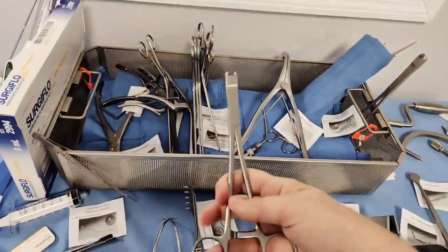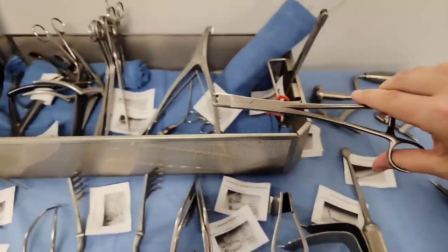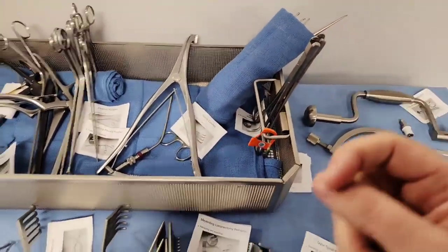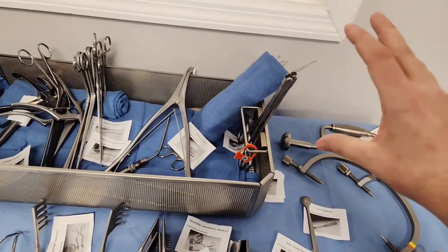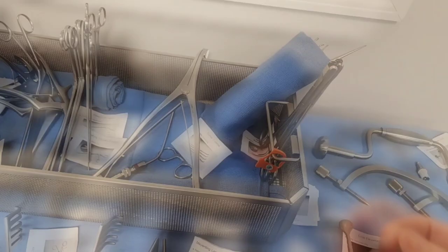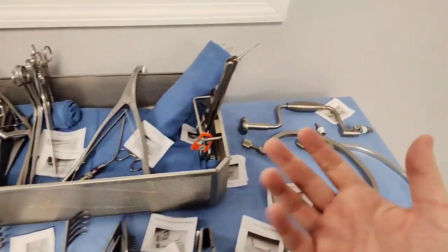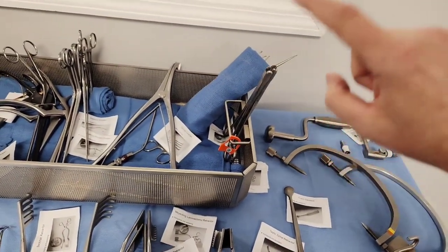This is what they call a Raney clip applier — it would hold some Raney clips. For test purposes, if I say a Raney clip or Raney clip applier, what is that used for? Something called a flap — a bone flap. Picture the skull: we have a brain tumor or a hematoma. Blood has accumulated in the brain and we have to get those clots out because the intracranial pressure is too much. So we shave the hair, make three little burr holes, and connect those dots.